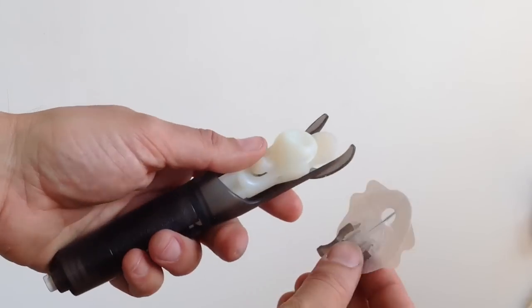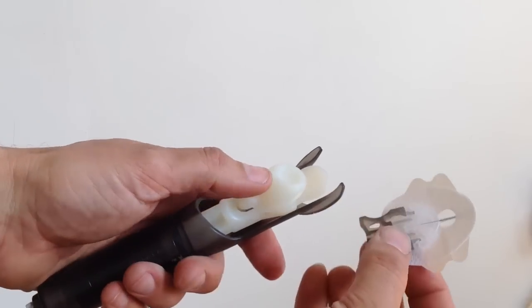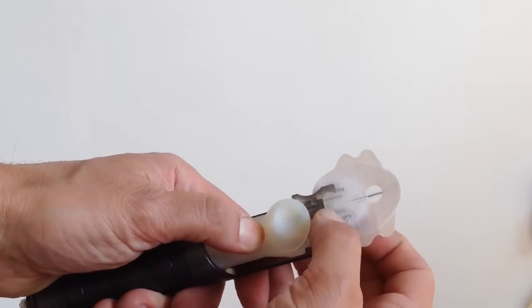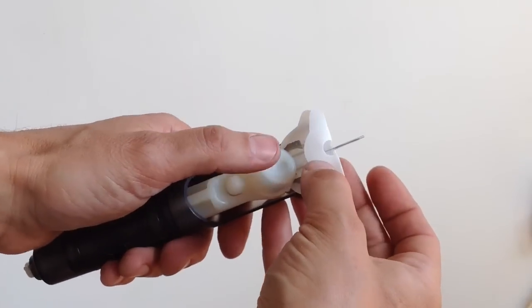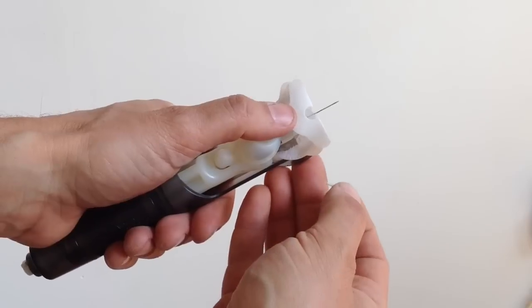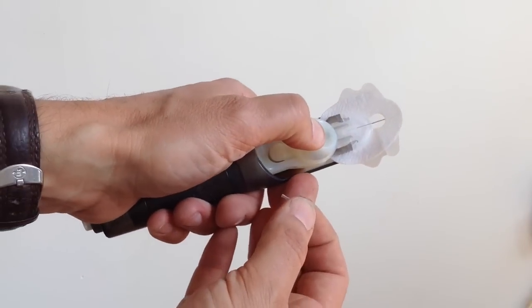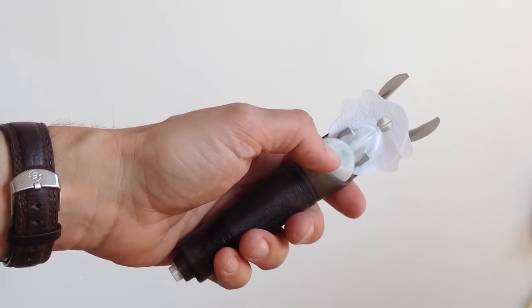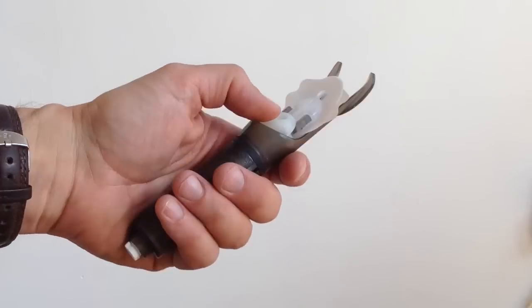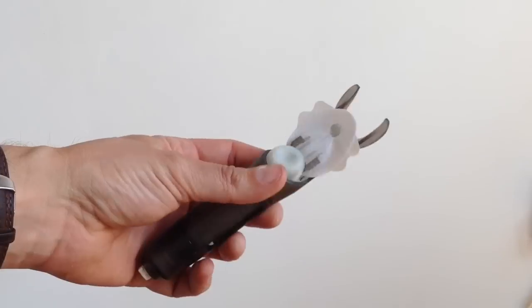So this is the inserting device for a silhouette, the angled sets that I use. I just slot that in there. And then there's a little blue cap just to protect the needle and the cannula itself. And then this slides back to prime it. And then you find your site and pop it in. It looks a bit medieval torture implement to me, this.